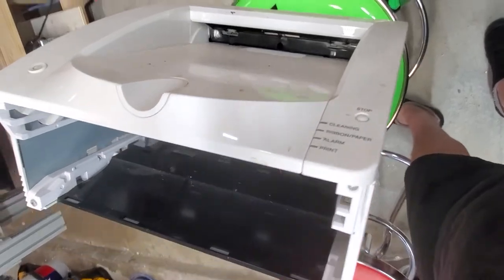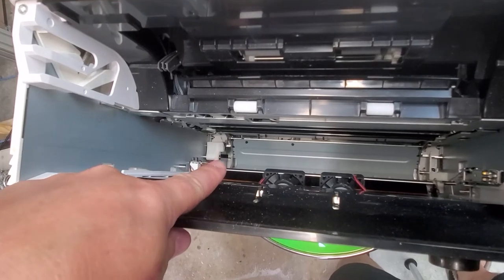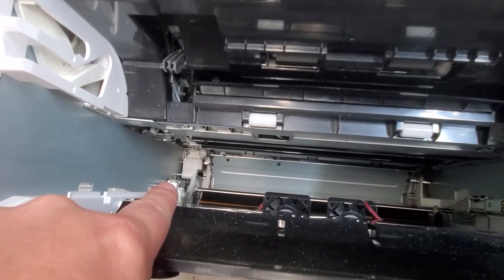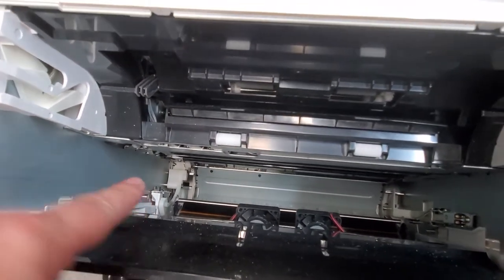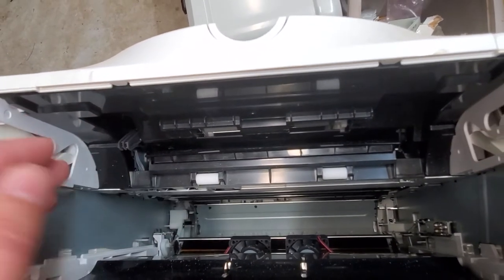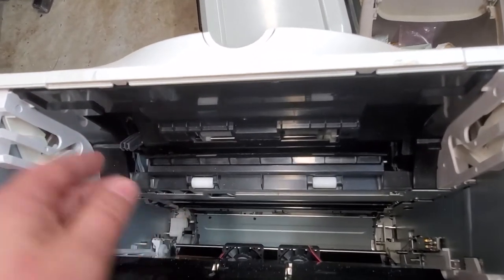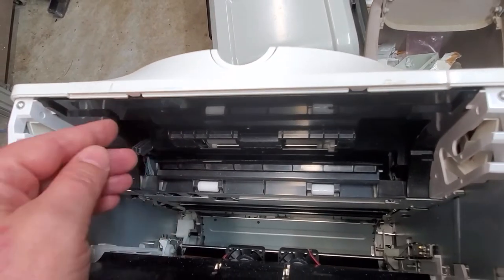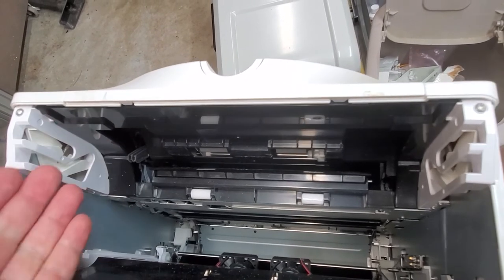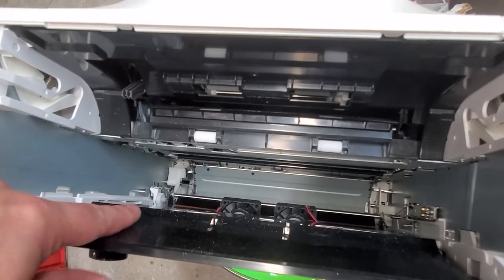You probably recognize this — the UPDR80. This is a medical grade printer and it uses an optical interrupter right there to detect when the drawer is entered. All these little flags that detect when the paper has gone through its path are almost always an optical interrupter flag. As the paper comes through, it hits the lever, it unblocks or blocks the optical interrupter and tells it: you have a paper jam, or we've completed the whole cycle and we're ready for the next page.